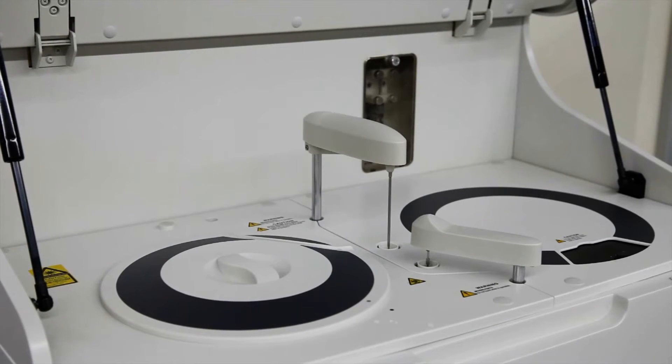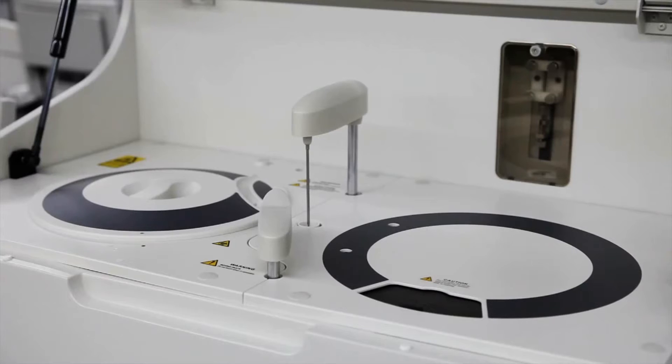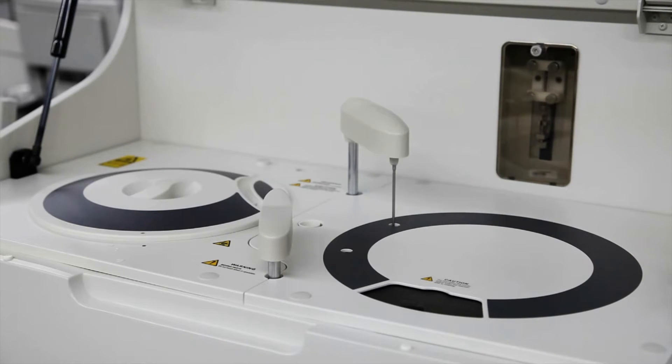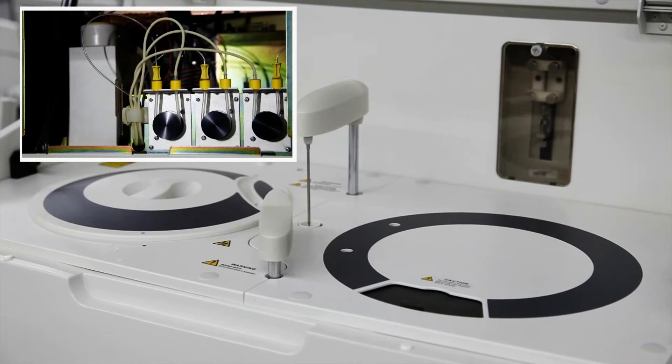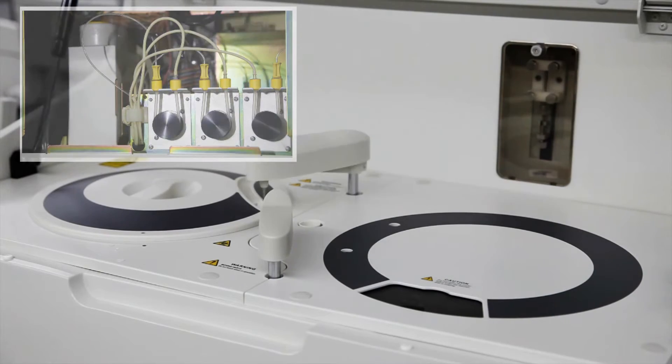This elite, random-access benchtop analyzer serves as the workhorse in today's physician's office and small laboratory. The BS200 offers 200 tests per hour throughput. With the optional ISE module, it enhances the throughput to 330 tests per hour.